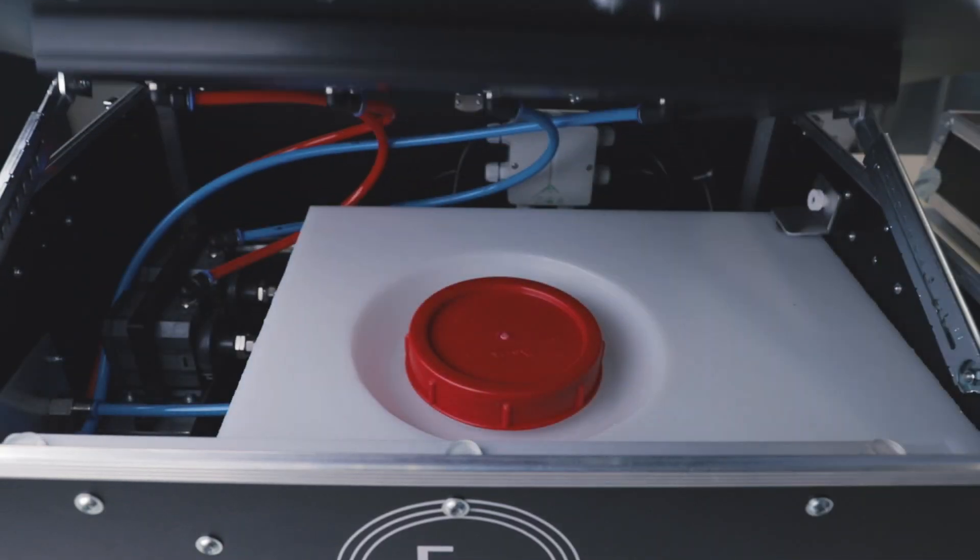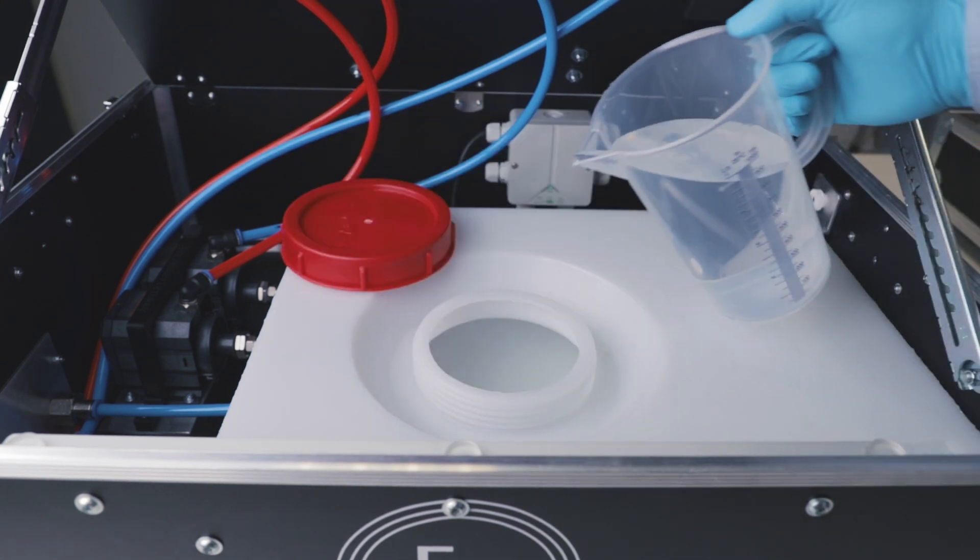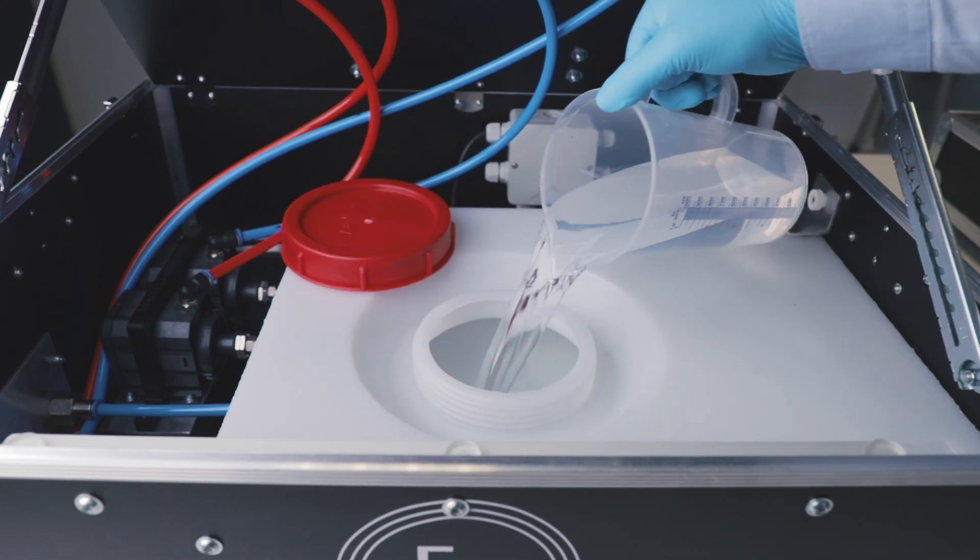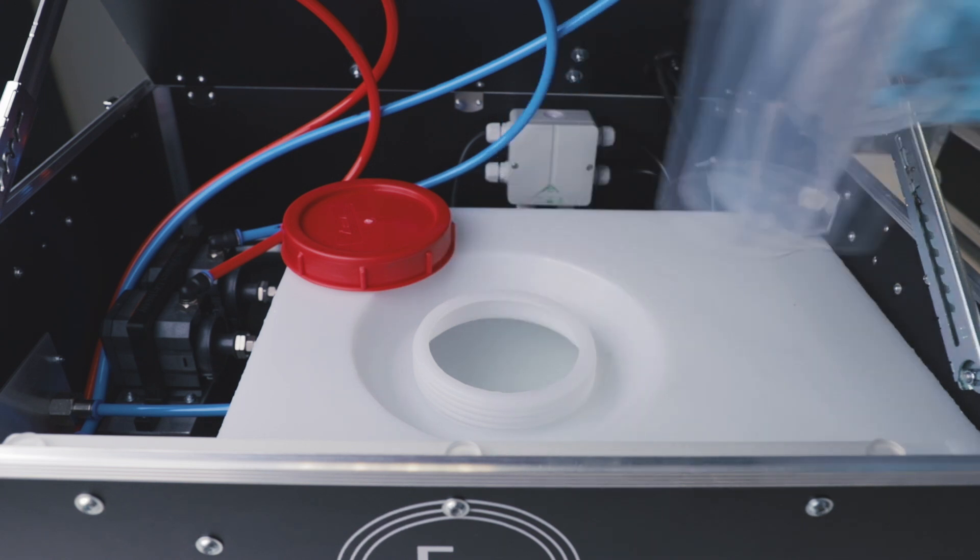Now, open the pump case to fill the blood tank. Make sure to fill it with distilled water. You may add hygienic solutions or color to the water. That's up to your preference. Fill the tank completely.